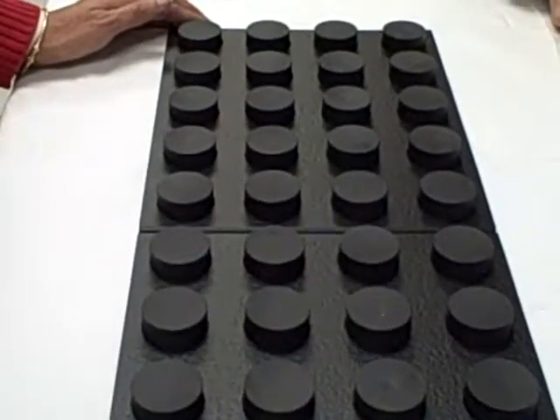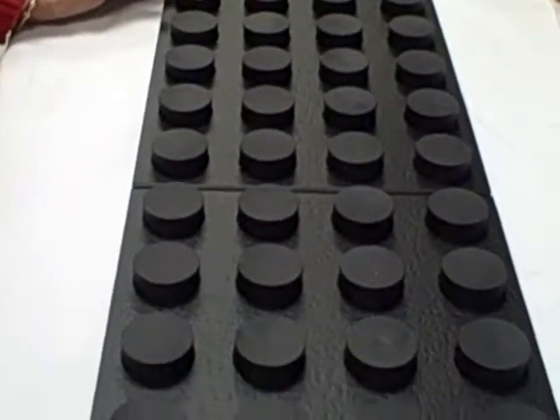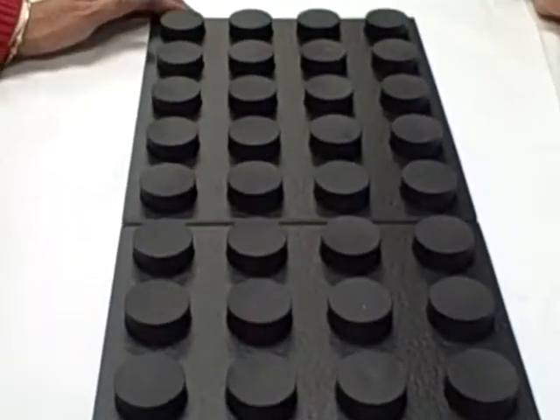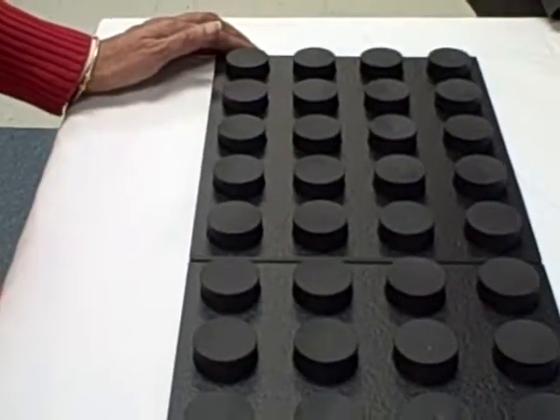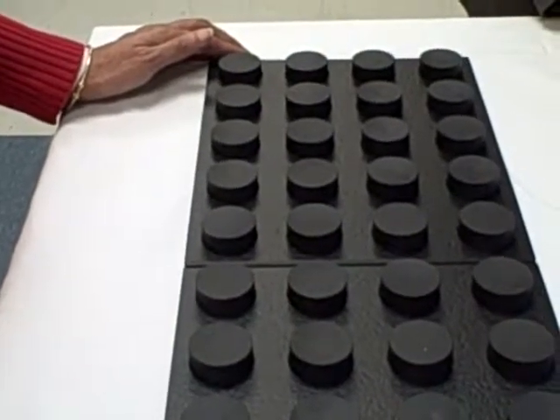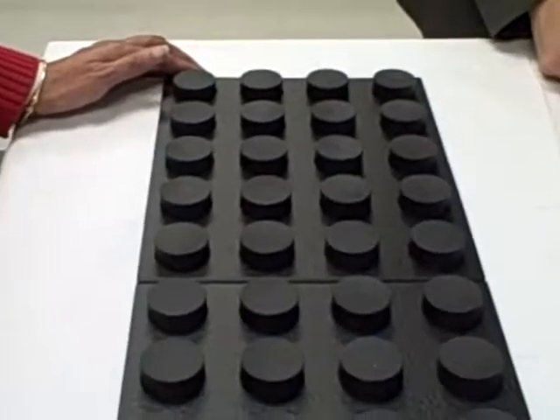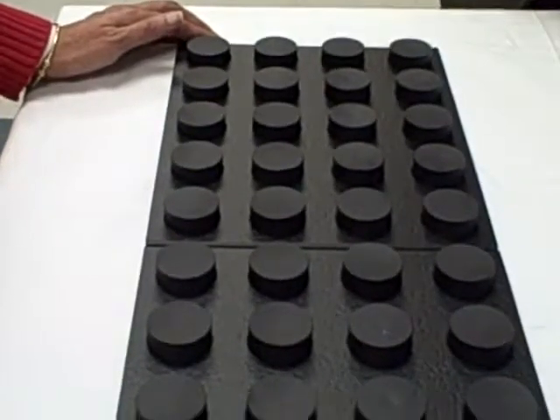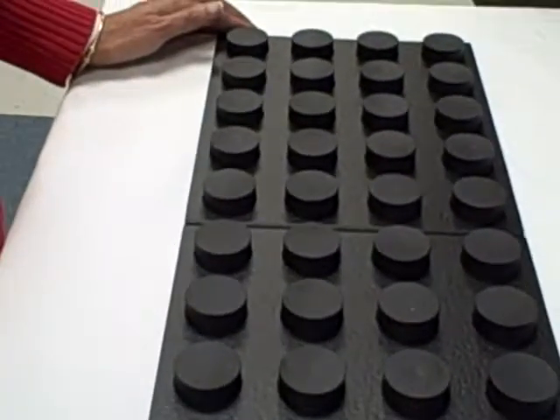This test is called the Complete Minnesota Dexterity Test, CMDT, also known as the Minnesota Rate of Manipulation Test, MRT, or the Minnesota Manual Dexterity Test. It's known by a lot of names, and it has a lot of subtests.